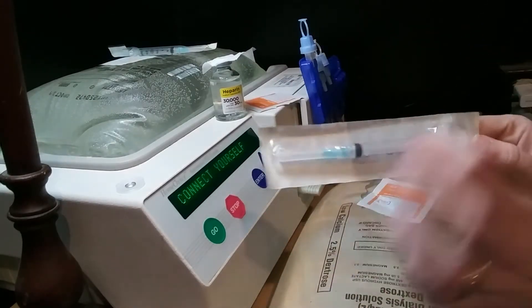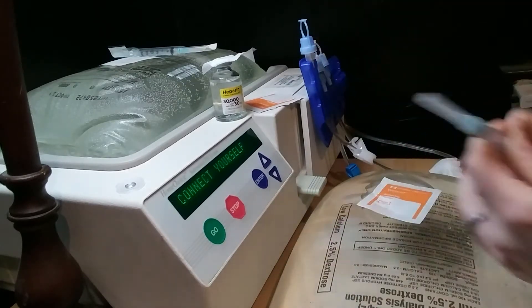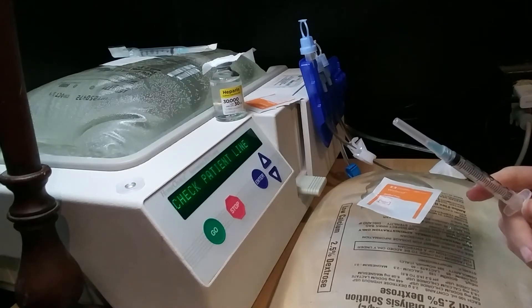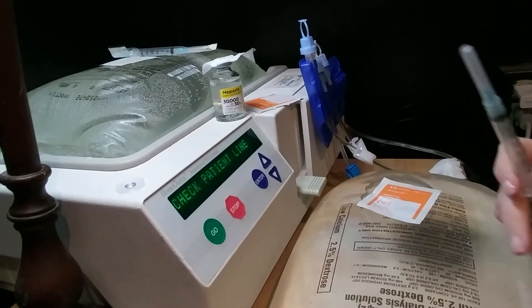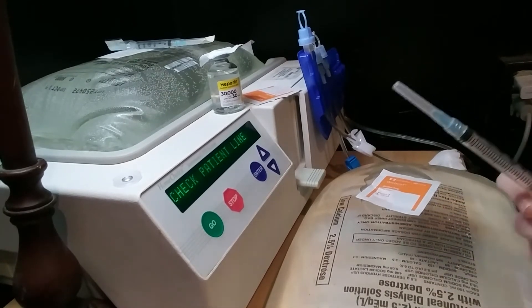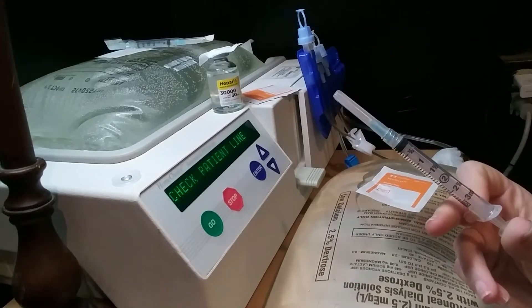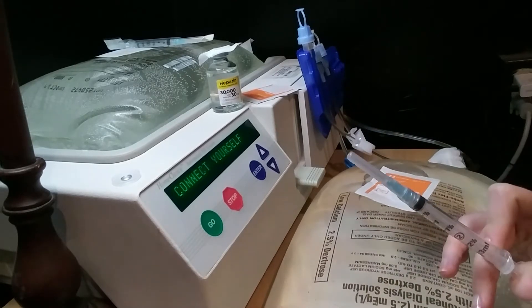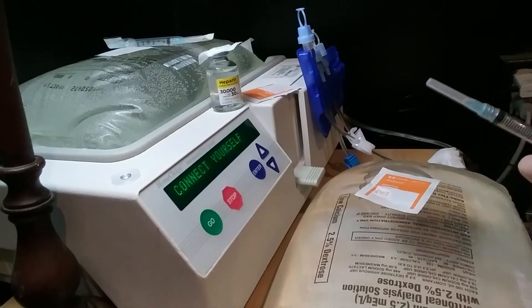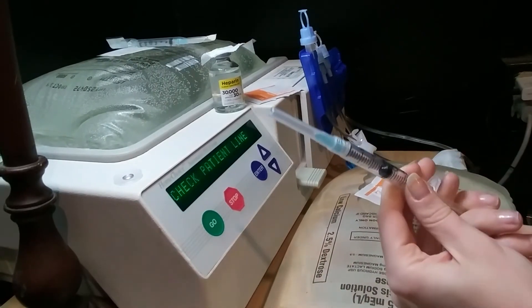I'm going to take my first syringe out of the package — you have to screw the top on to make sure it's tight. My bags are 6,000 milliliters, so I'm going to do three milliliters, because it's half of six. So if your bag was 5,000 it would be 2.5; if your bag was 3,000 it would be 1.5. It's whatever is half of the first number — 6,000, half of six is three. Can't exactly remember why that is, but that's how it is.